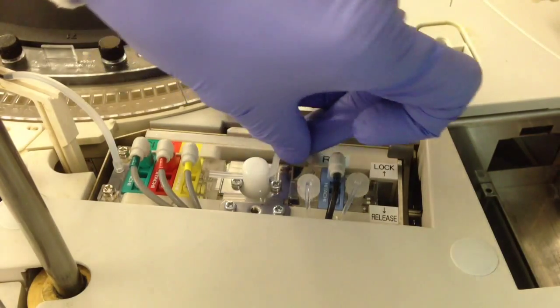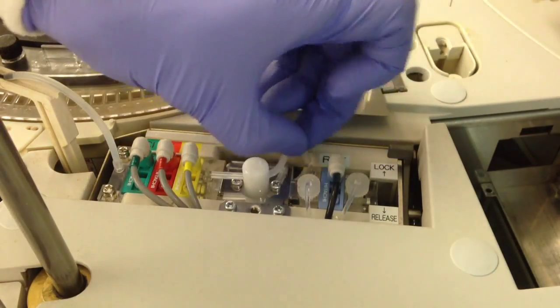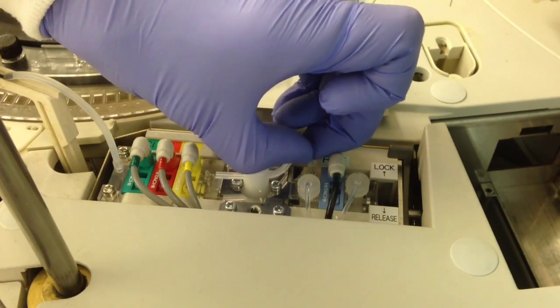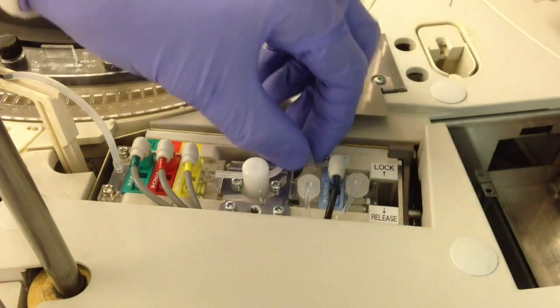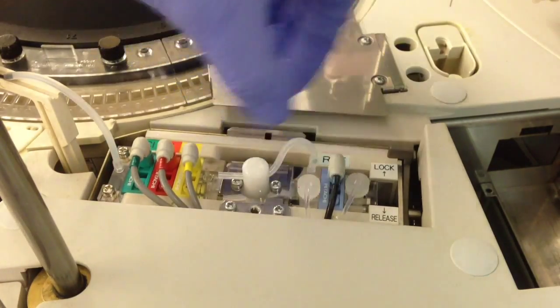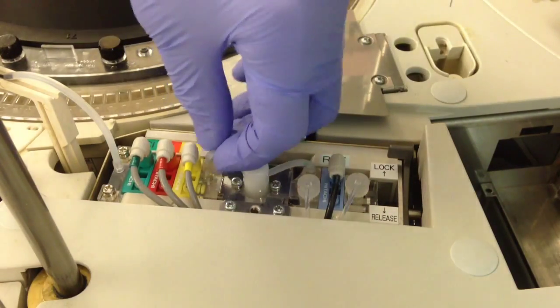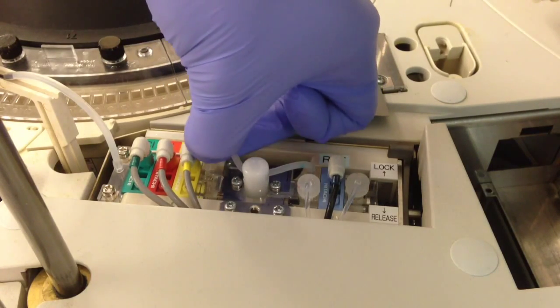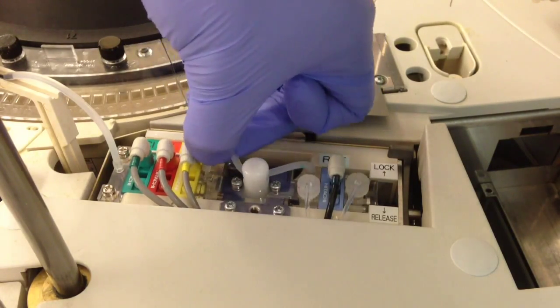This could be a little awkward, especially if you have big fingers or you're filming yourself and the camera is in the way. Just manipulate it so it goes back onto the connector and slide it on. Be careful not to break anything, as that would be a big problem.